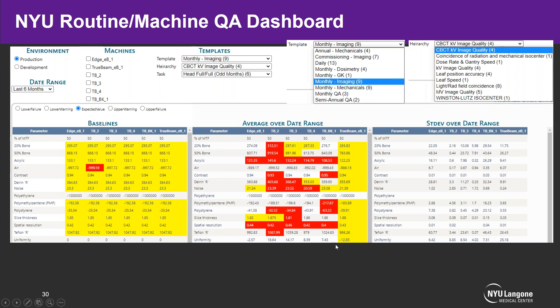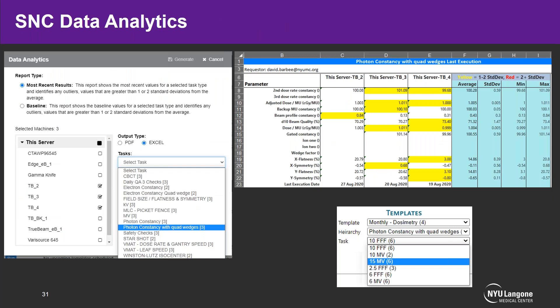This dashboard has been very helpful in ensuring our entire program is standardized — we can go through every test and template to make sure baselines are consistent with no outliers. Since presenting at QADS in February, SNC has released data analytics in their latest version, where you can specify results or baselines, select tasks or templates to view, and export to PDF or Excel. Currently it appears to combine all energies into averages, so they will likely need to add more granularity to allow looking at a single energy across machines.